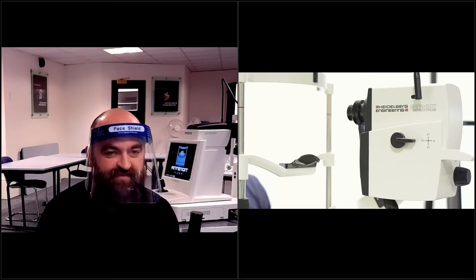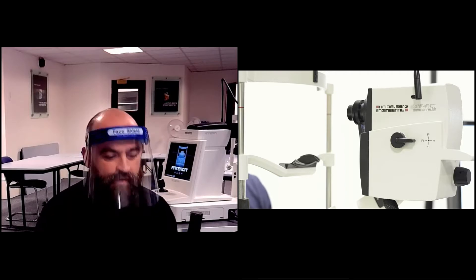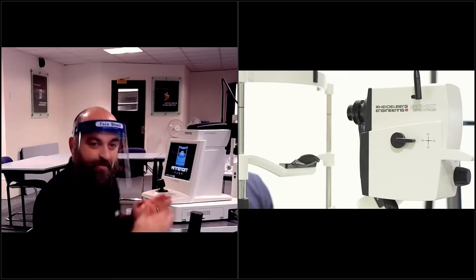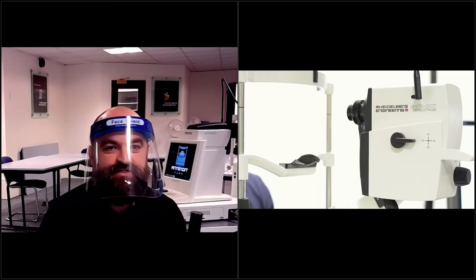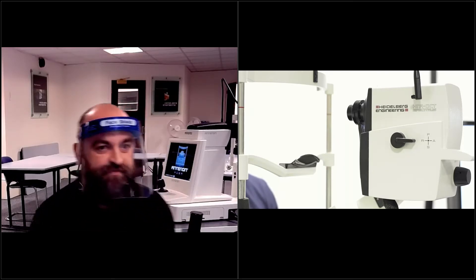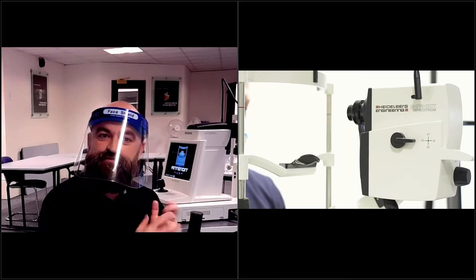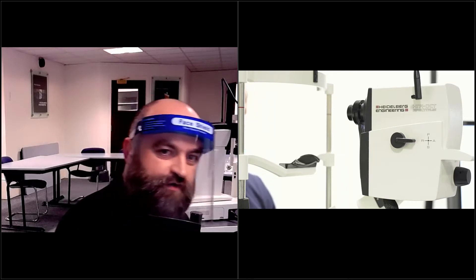The plan this evening is to go through using the anterior segment module — the ASM lens — and show you how it goes onto the head of the Spectralis. We'll go through the scan patterns with the Spectralis, then jump over to the Anterion. What I want you to take away is that this is very much an imaging session. The Spectralis is an imaging specialist OCT platform, and the Anterion is exactly the same, though it can also do biometry and corneal tomography.